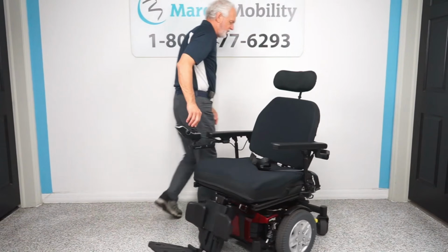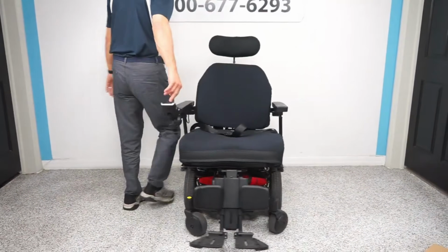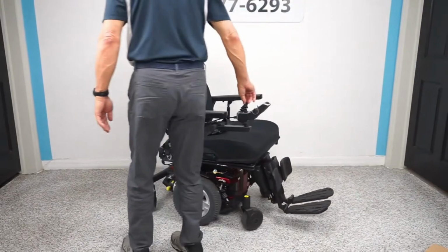So your turning radius on an HD is going to be smaller. The turning radius on a Quantum Edge HD is 19.75 inches, while on the other units that I mentioned, you're more at that 20.5 to 21 inch turning radius. So you would think, hey, it's a bigger unit. Yes, the wheelbase is wider, but due to where that drive configuration is, that is going to be the smallest turn configuration out of all of the units.